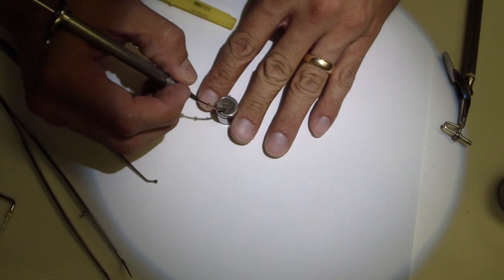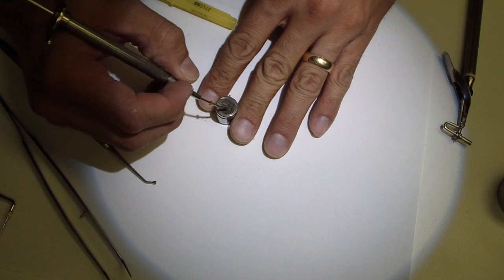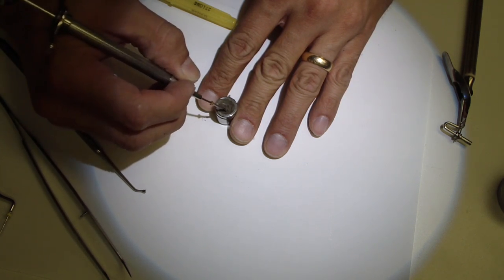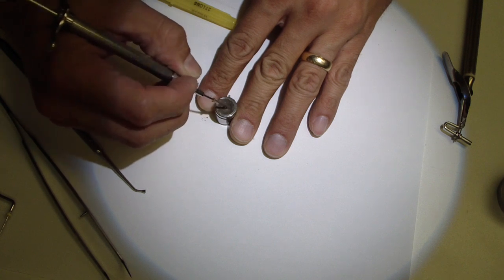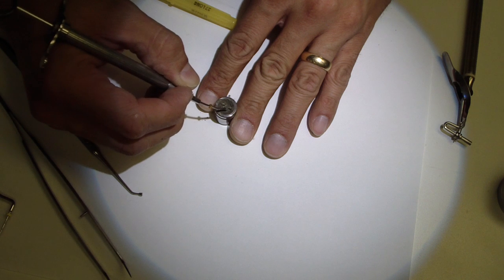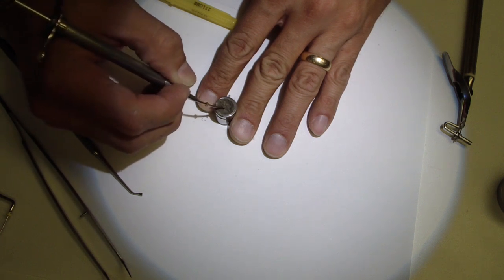So and then loading it, it's just like an amalgam carrier. This may be a little bit runny actually still. You can still see some water, it's still shiny. Typically, you don't want to see its shininess.